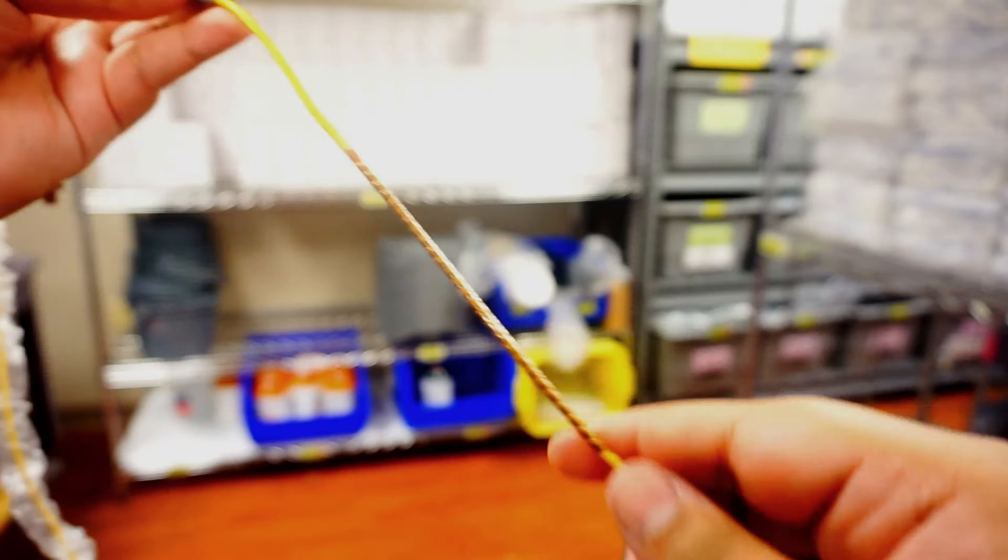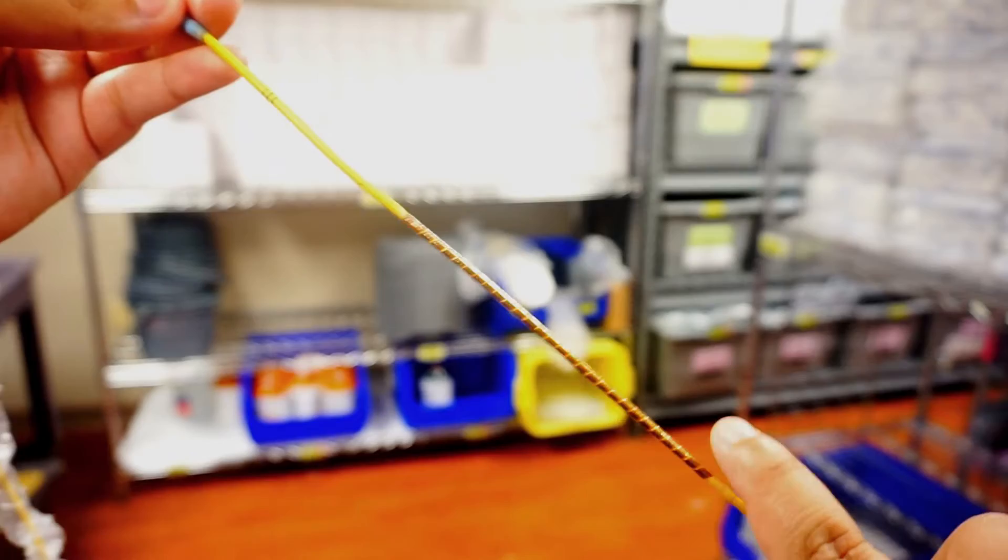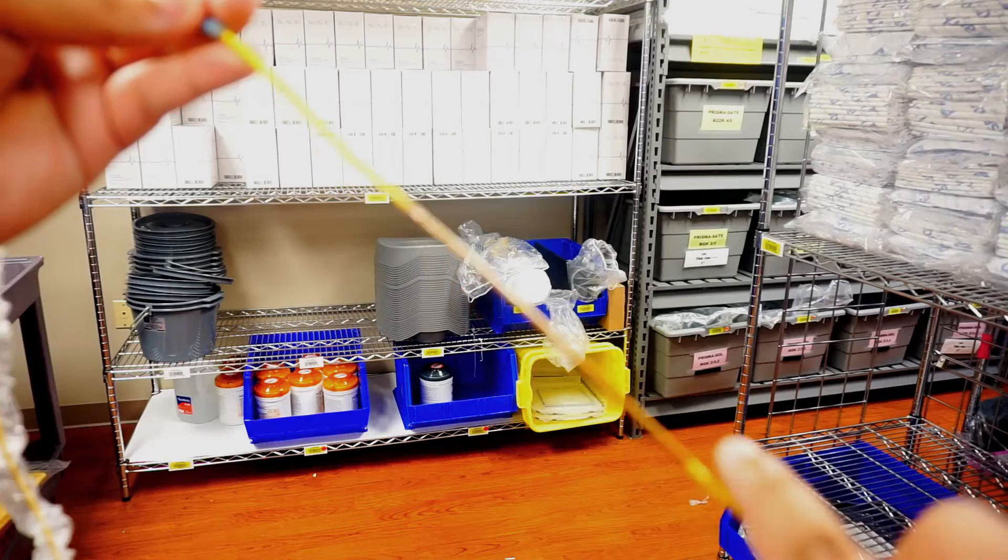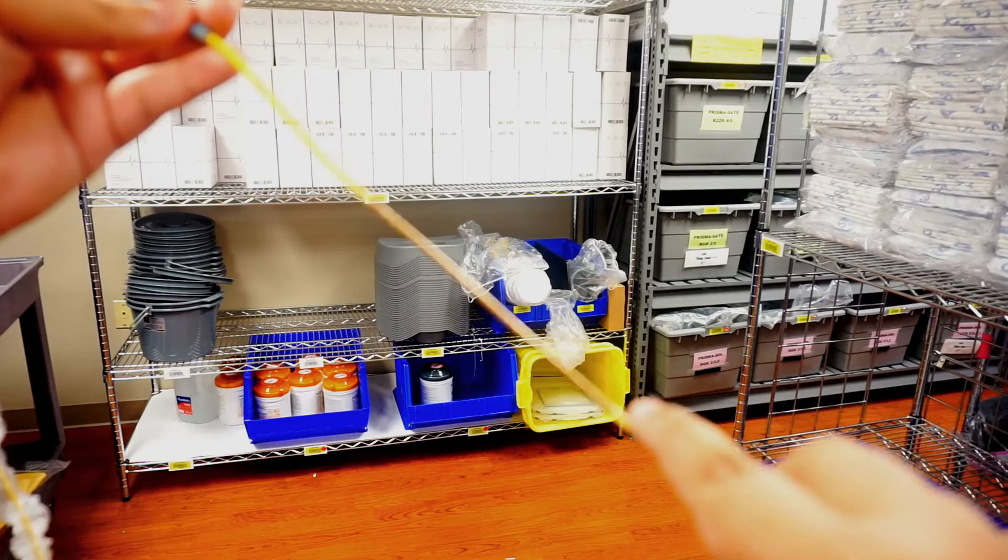This brown coloration on your line is actually going to be the portion that's in your right ventricle. That's going to be telling your monitor what your cardiac output is, and your cardiac index will be calculated based off of that.